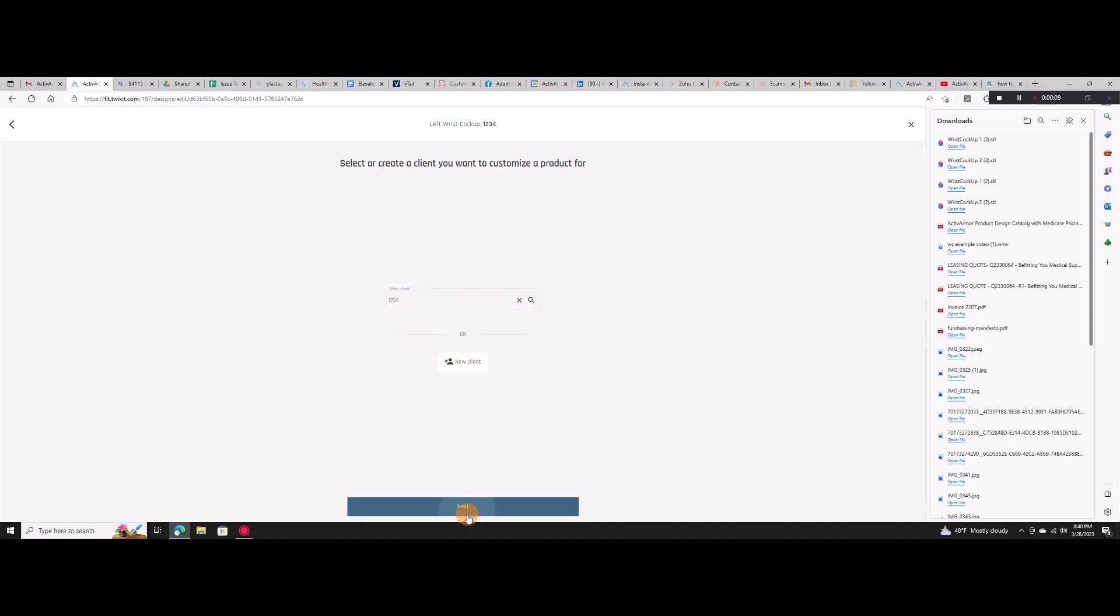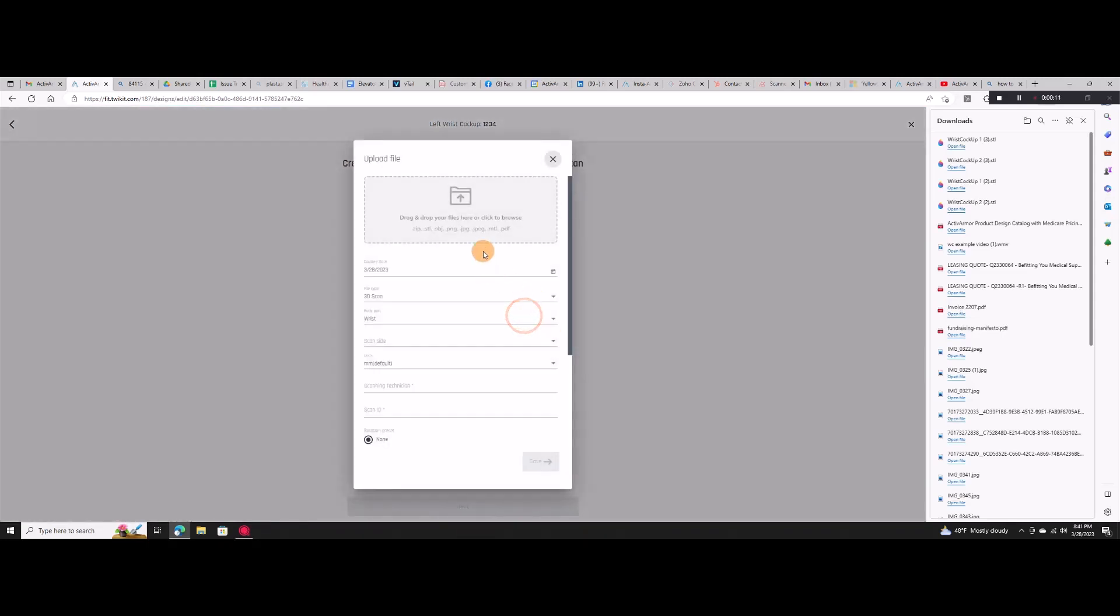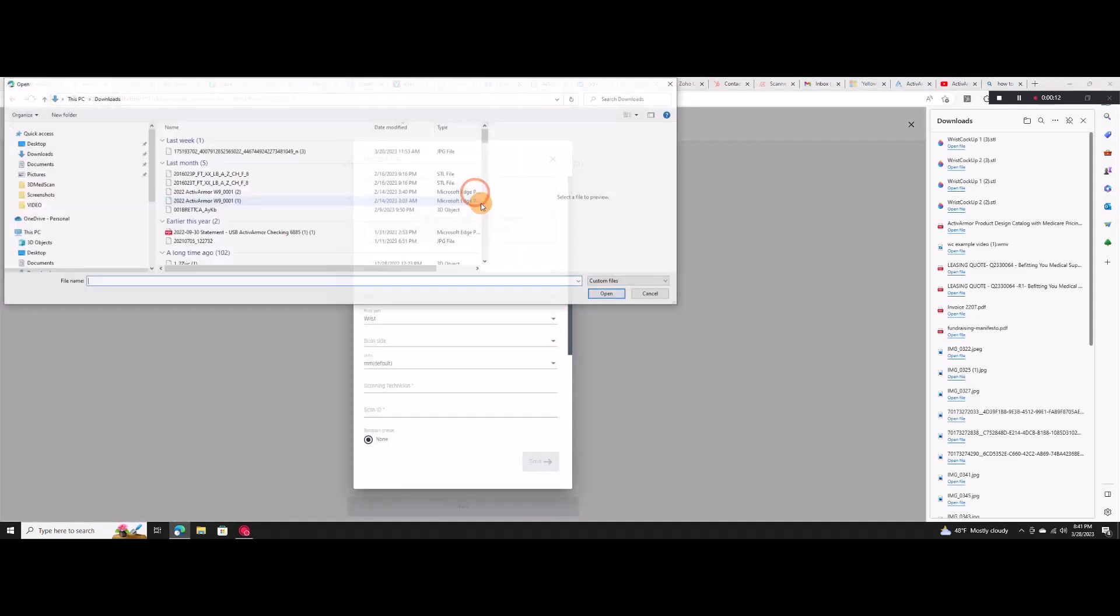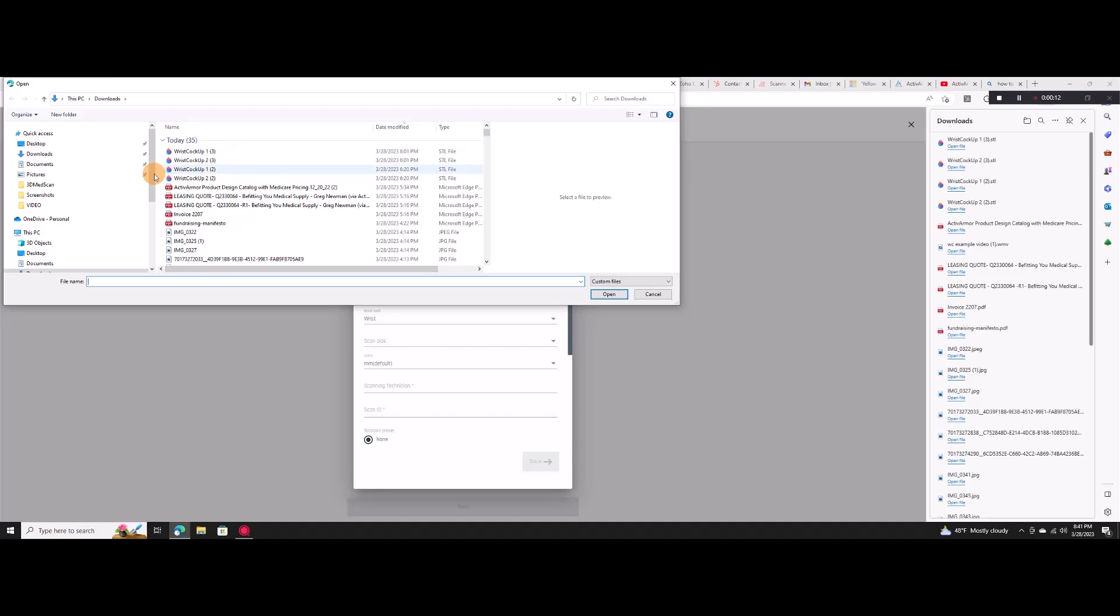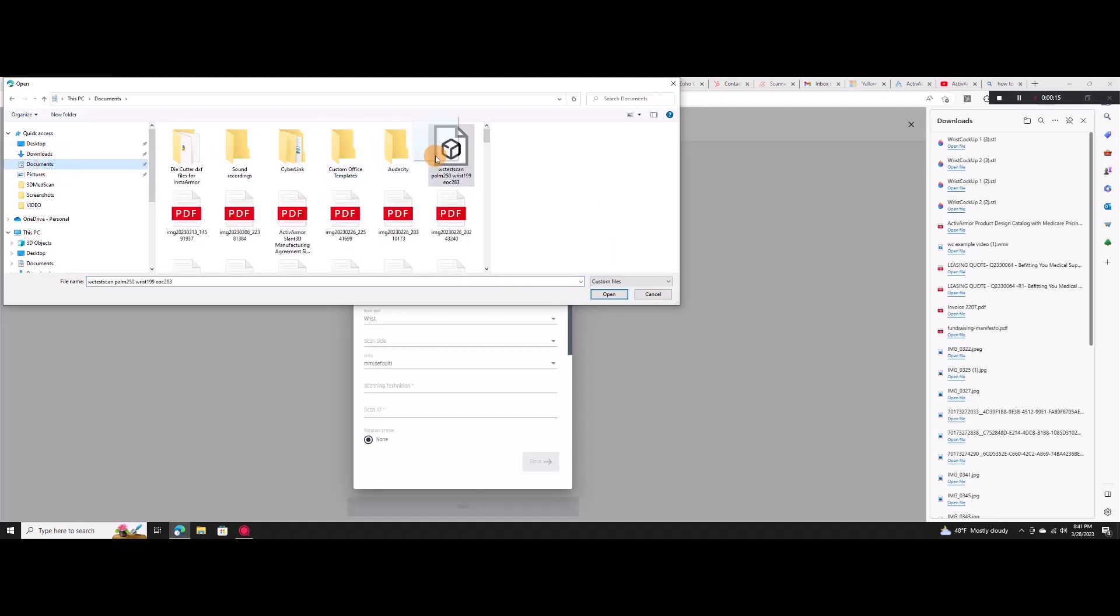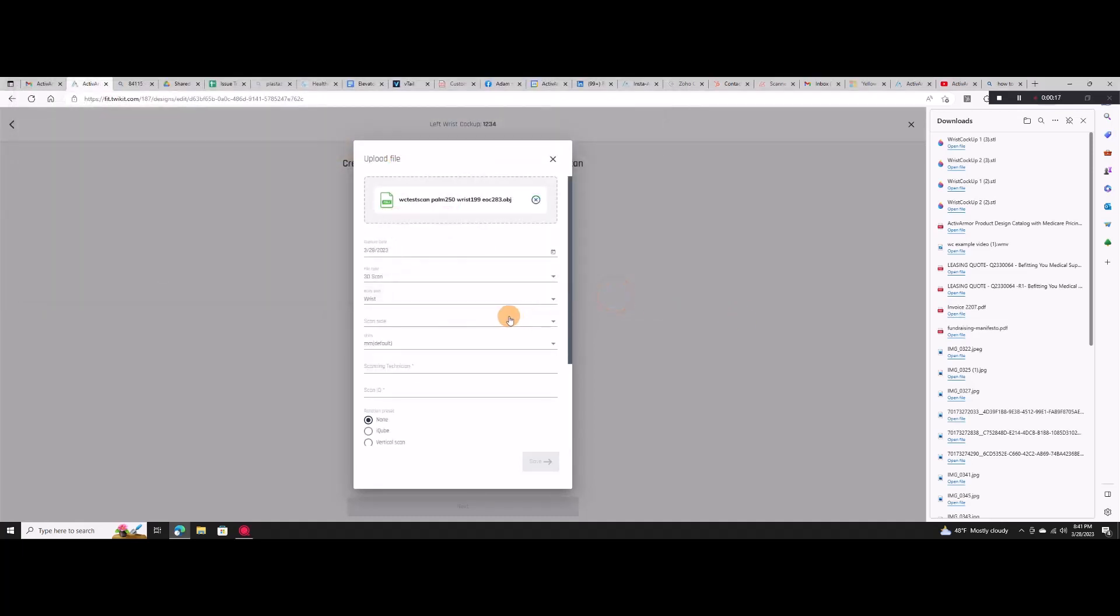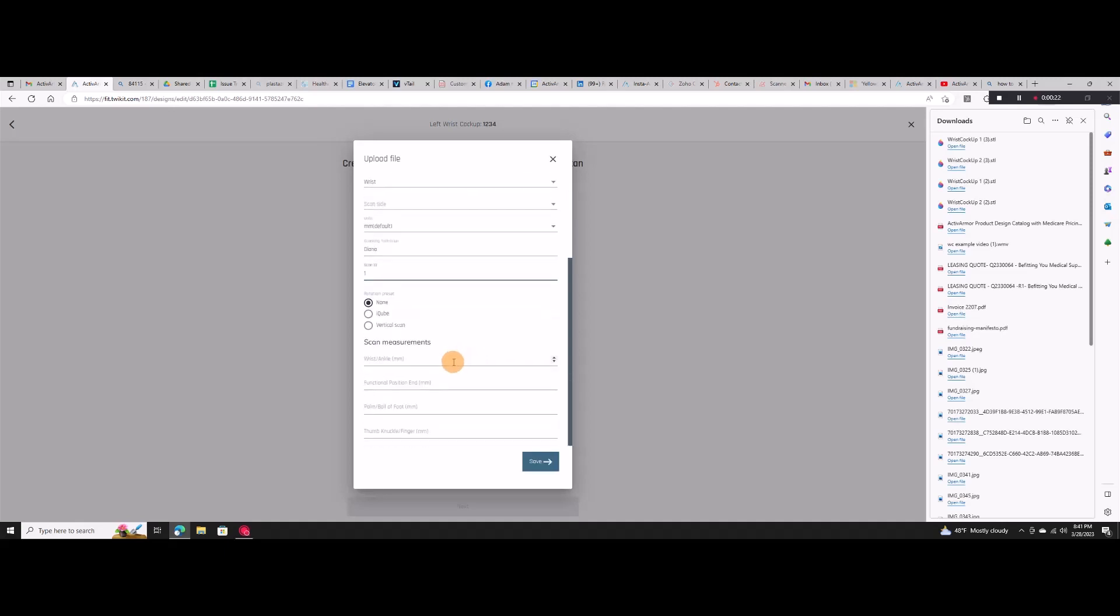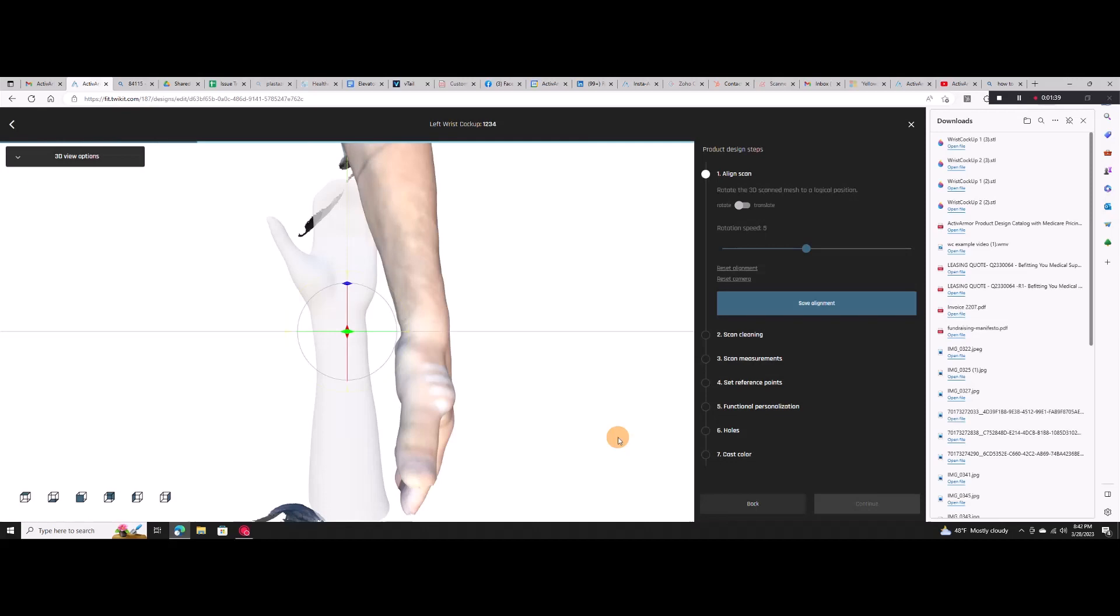You can use our free full-color iPhone scanning app to capture the patient's native anatomy map in any position desired. We don't get any HIPAA information. Use any patient ID number of your choice to match with your patients. You can enter manual measurements to ensure scan quality and fit of the final device.